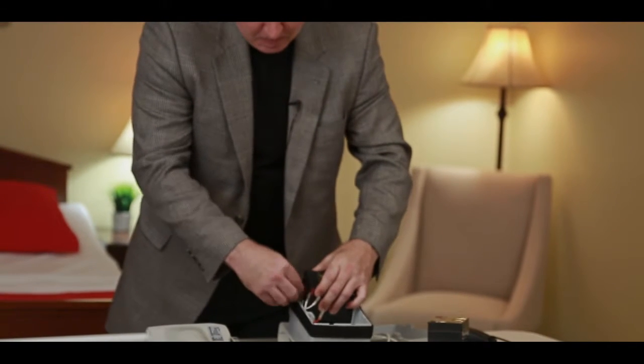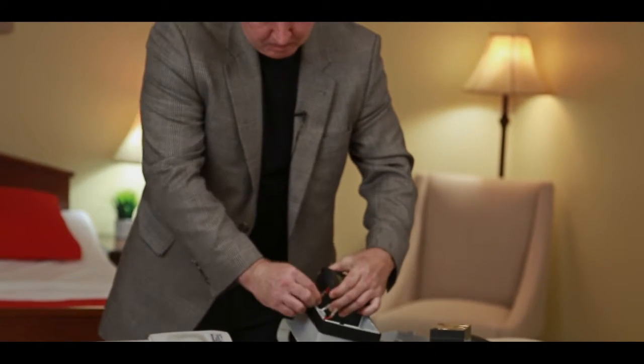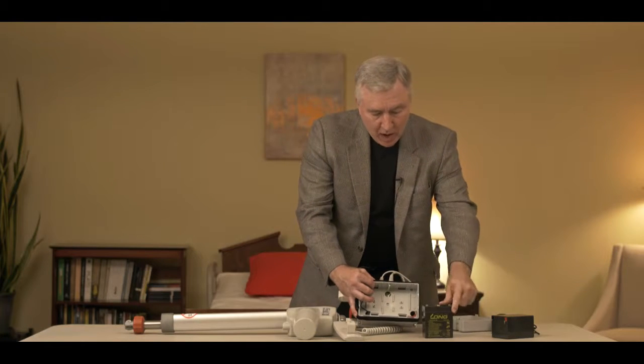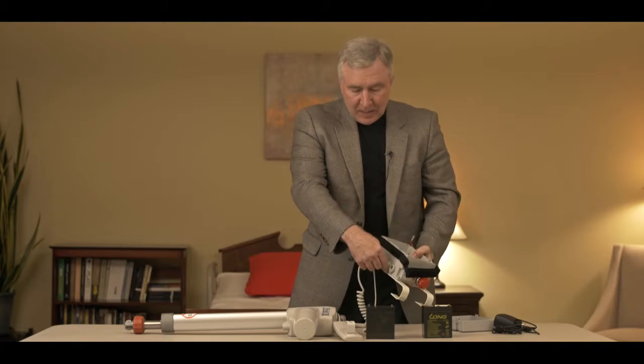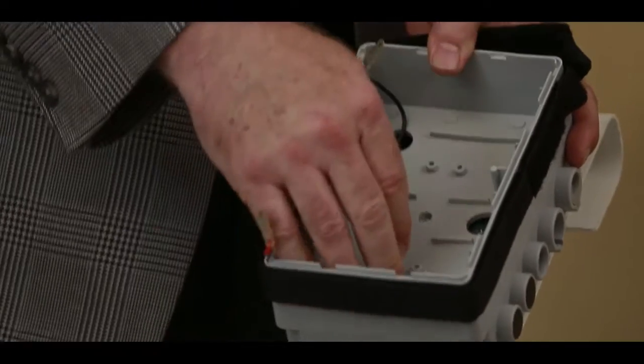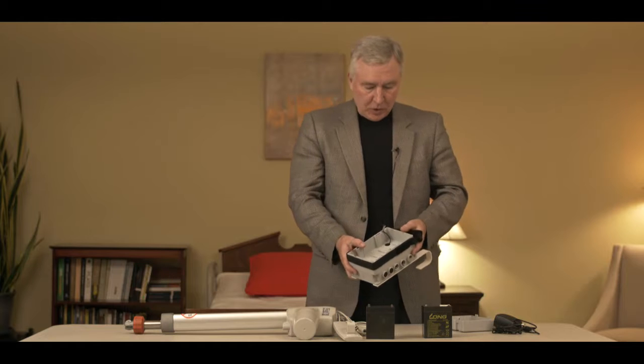When you have them out, you have a red wire, a black wire, and a white wire. The red wire connects to one side of the red terminal on the battery. The black wire connects to one side of the black terminal on the other battery. And the white wire connects to the red and black to complete the series. If you need access to the PCB on this system, remove all the plugs, remove the bolts, and lift the cover off — you would see the PCB resting right inside the control box, quite easy to remove if you need to replace it.